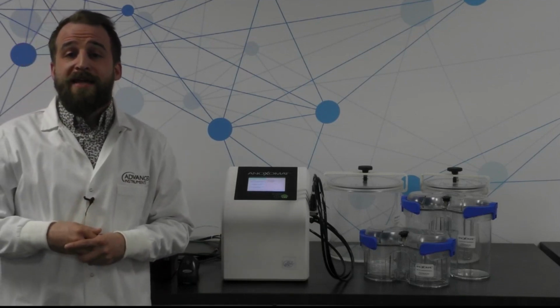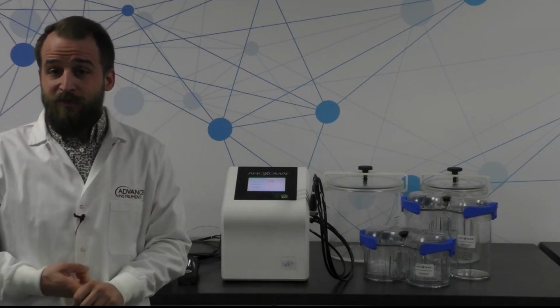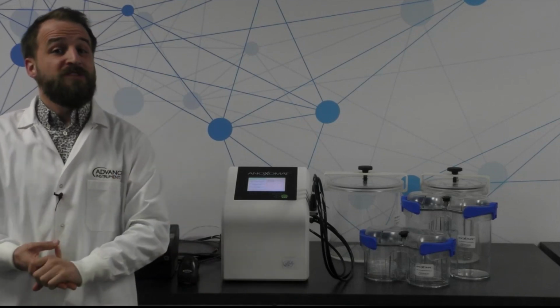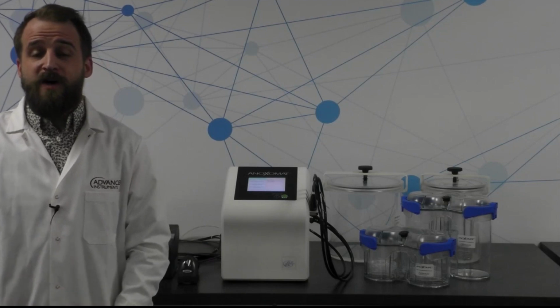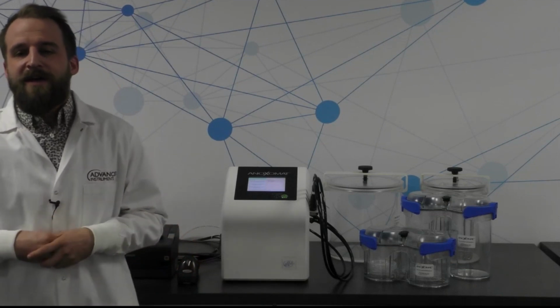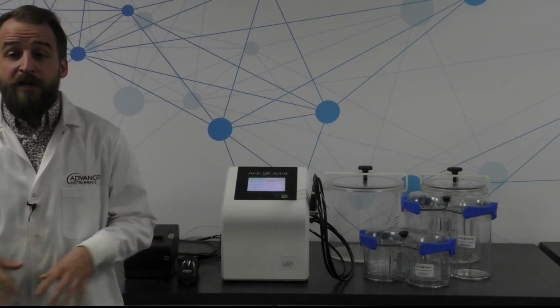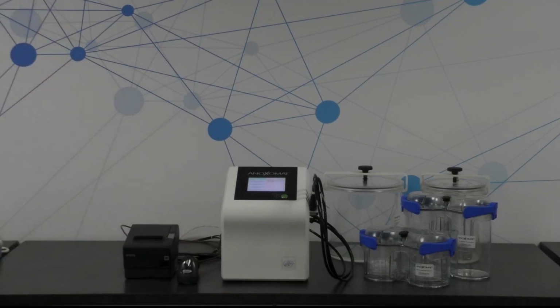As well as tracking the patient samples in each of the jars, which jars were used for the patient samples that you're tracking, and you can even track who generated the anaerobic environment and placed the jars in the incubator as well. So there's a bunch of really cool features tacked on to the user interface of the Anoxomat system that really make life easier in terms of your anaerobic workflow as well. So the first thing I'm going to do is just walk you through at face value everything that comes with the Anoxomat III system.